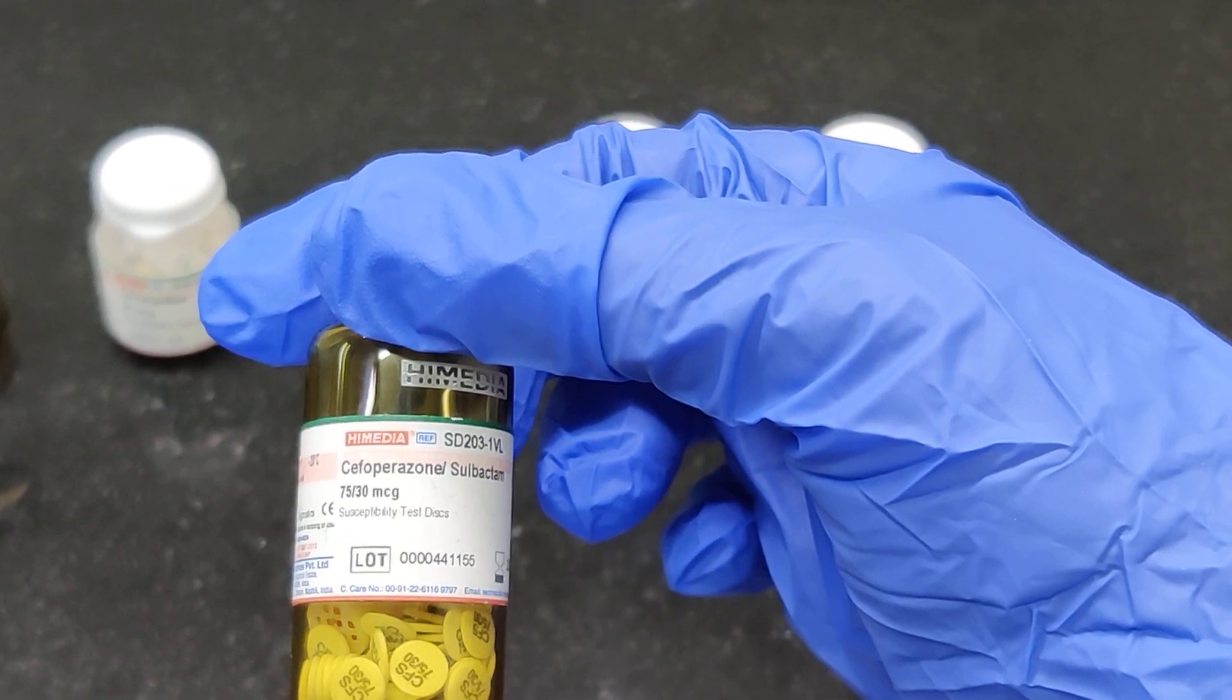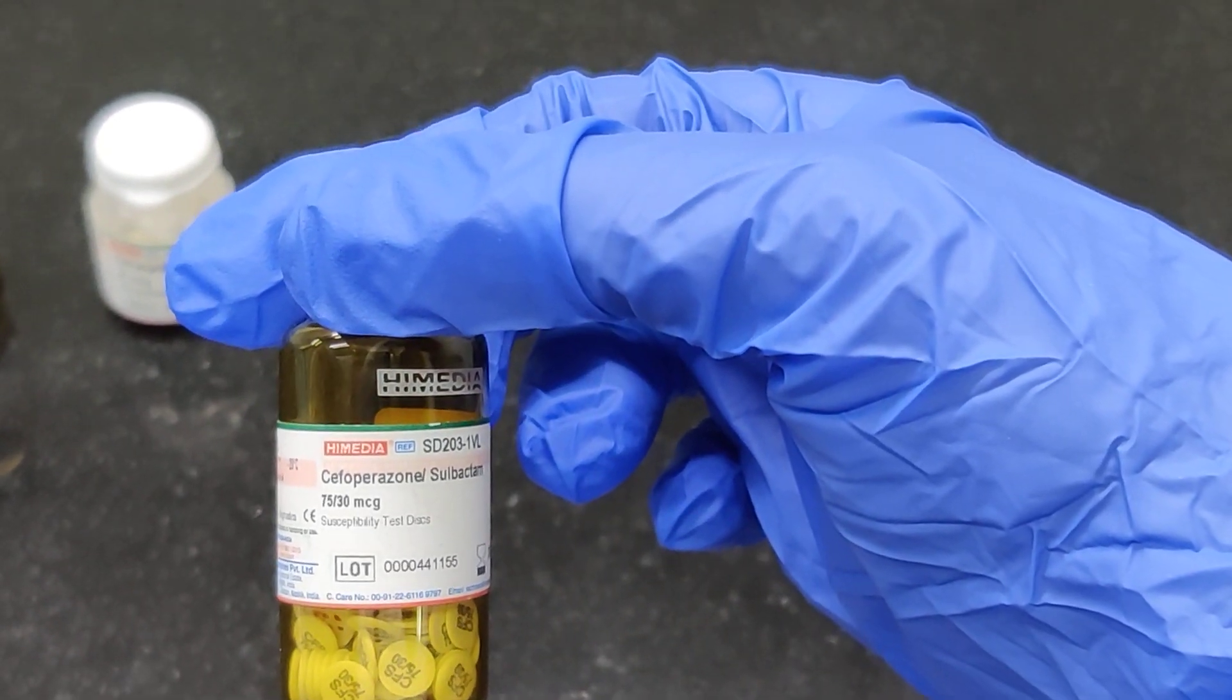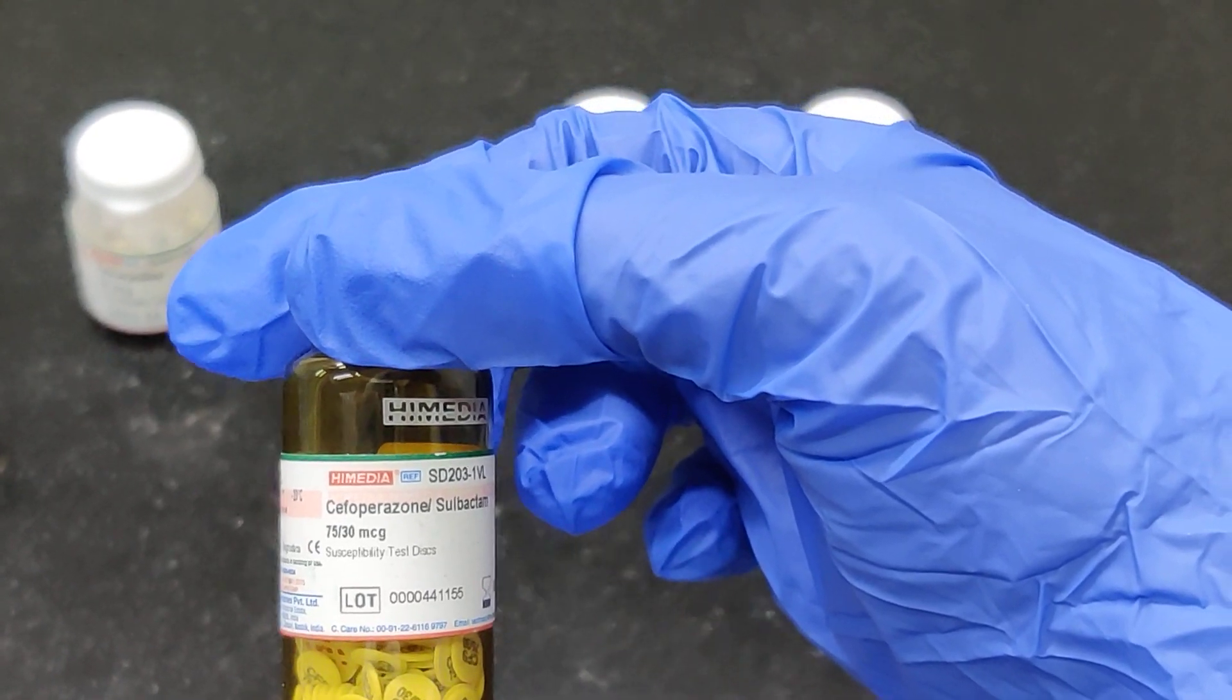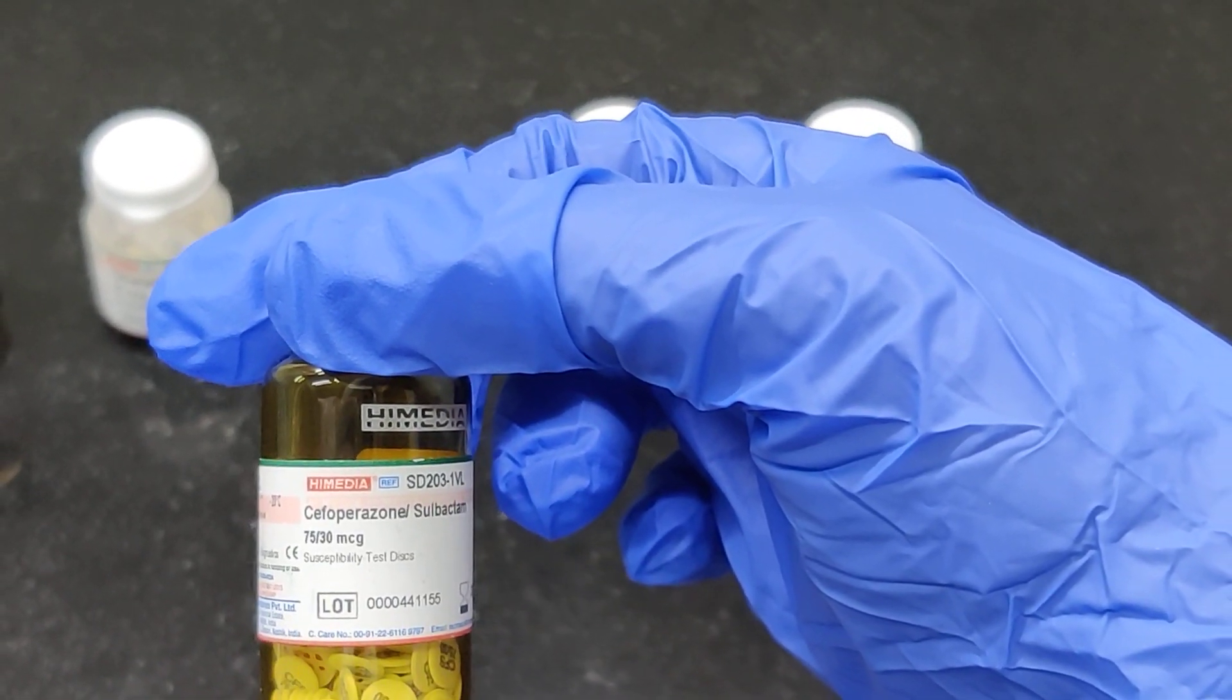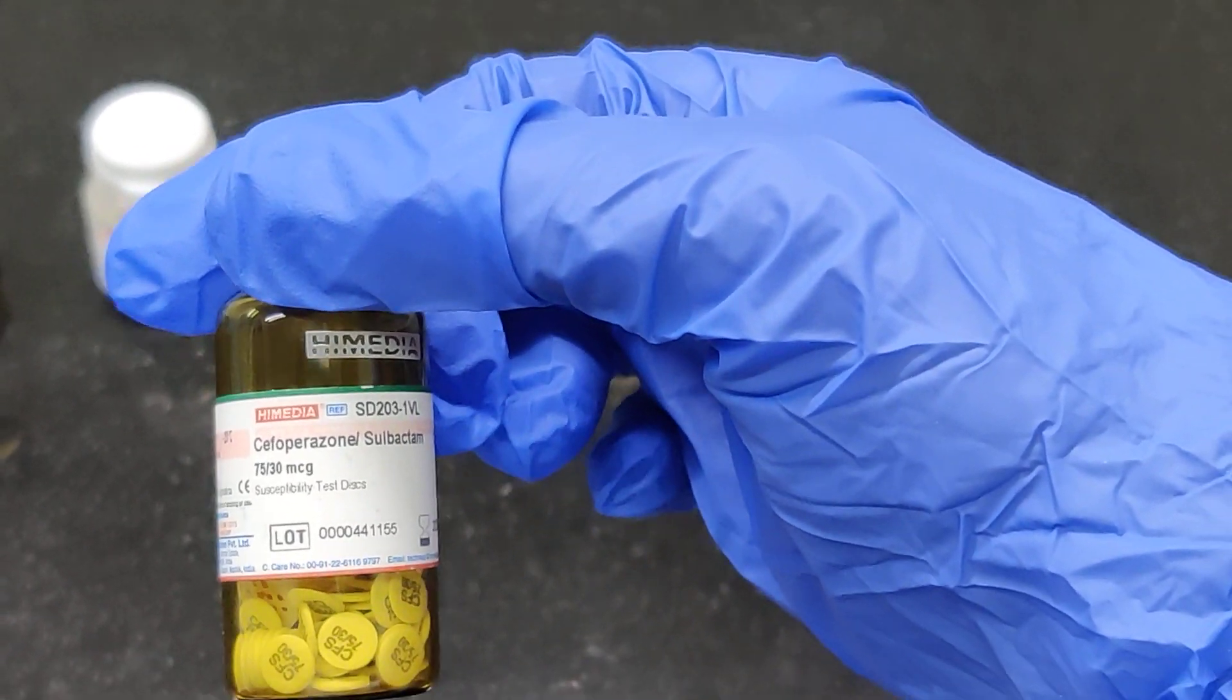That is AST. These discs are available in the market under the name of several manufacturers. For instance, I am holding one bottle manufactured by Hi Media.